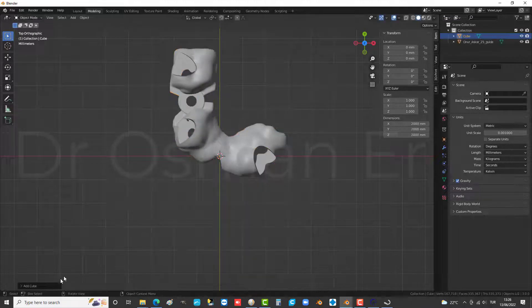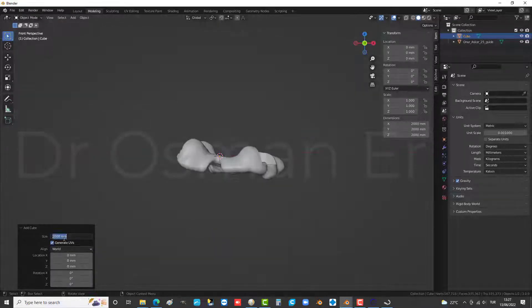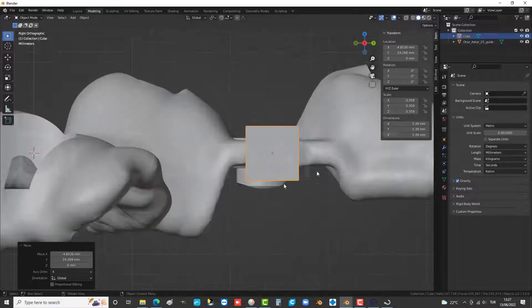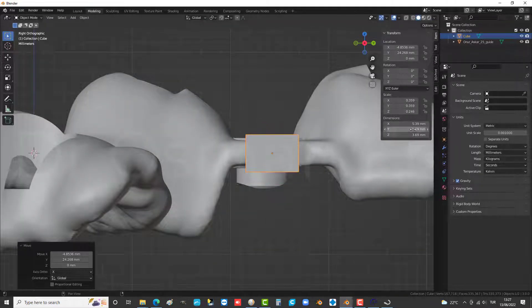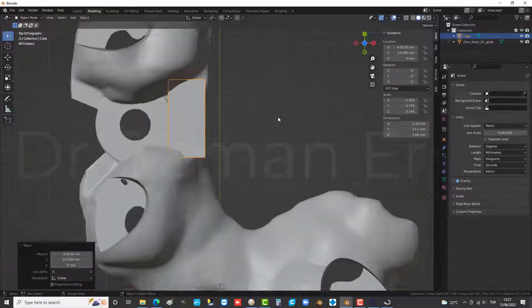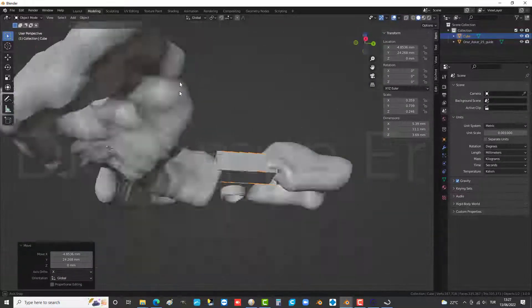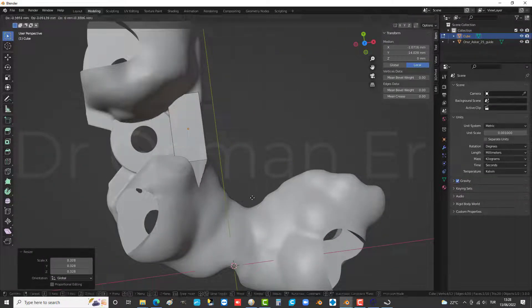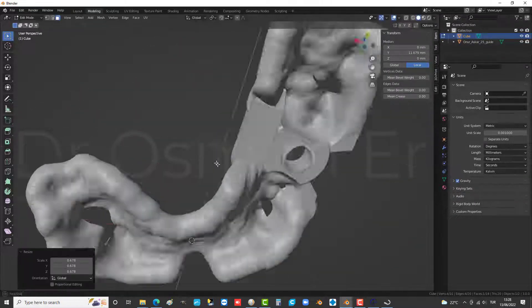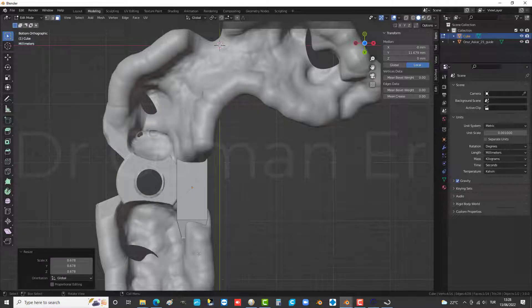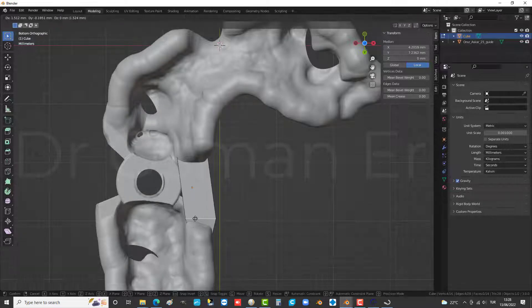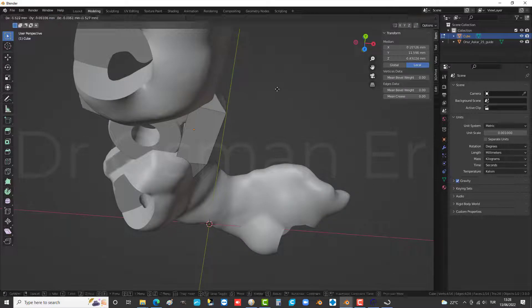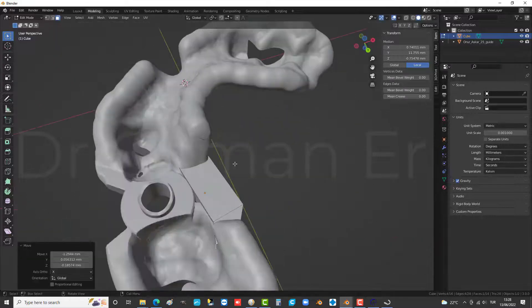some dental softwares may have missing features such as adding supports or names to a surgical guide. When the sleeve area is so thin, we may have fractures or the surgical guide may bend, leading to implant positioning problems. Also, writing names on the guide is essential.